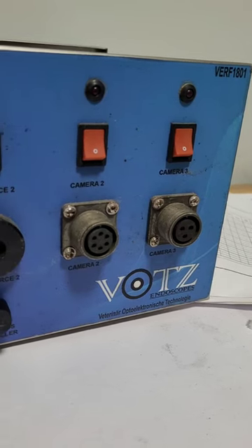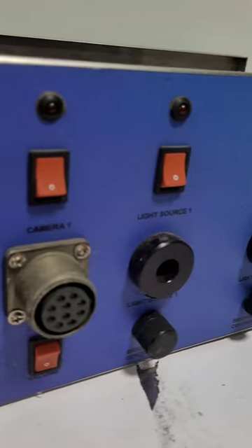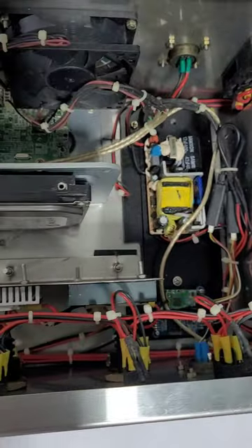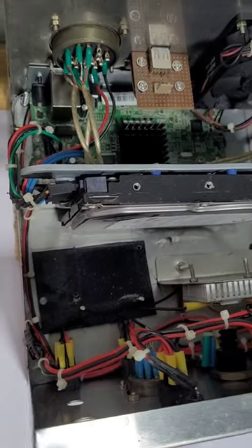This is an old endoscopy machine. It is a medical device used to examine the interior of a body cavity or organ. An endoscopy machine is made up of several key components, including a camera, light source, monitor, control unit, insufflator, and channels.